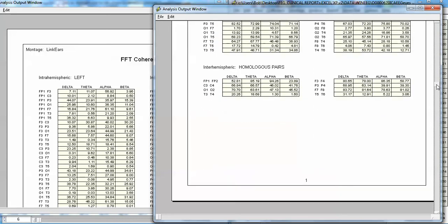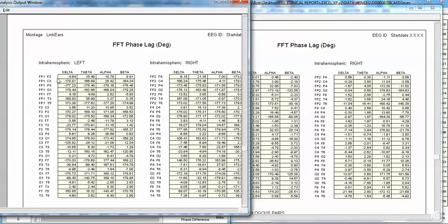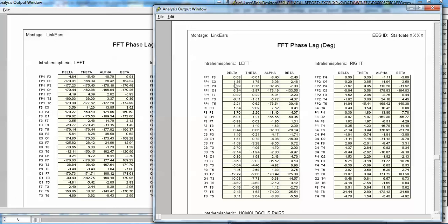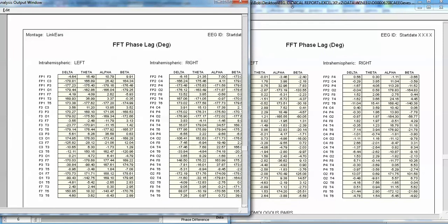Now going down to phase differences — anyone can do this. Here's 178.81 degrees between FP1 and C3 in the original, versus 1.35 degrees in the reconstructed. For the right hemisphere, FP2-C4 shows 166.24 degrees versus minus 0.29 degrees. If you go through these phase differences, there is not a single one that comes close. Very, very few of the original phase differences are preserved. These are the phase differences in the original record; those are the phase differences in the reconstructed time series, which is not a valid representation of the subject's brain. It represents a distortion.